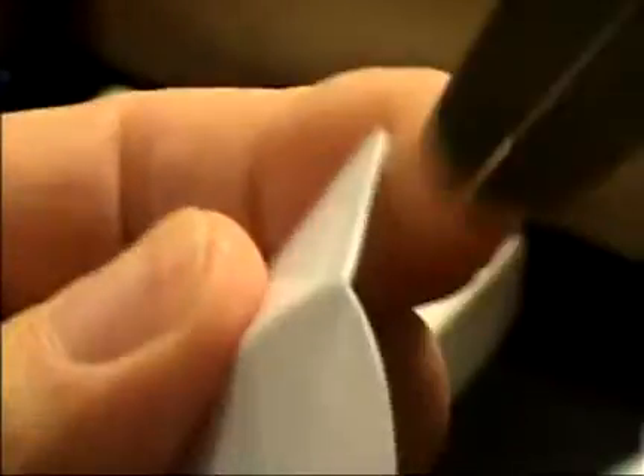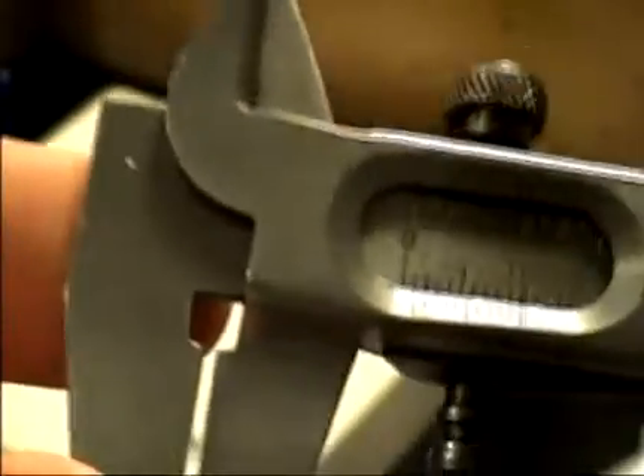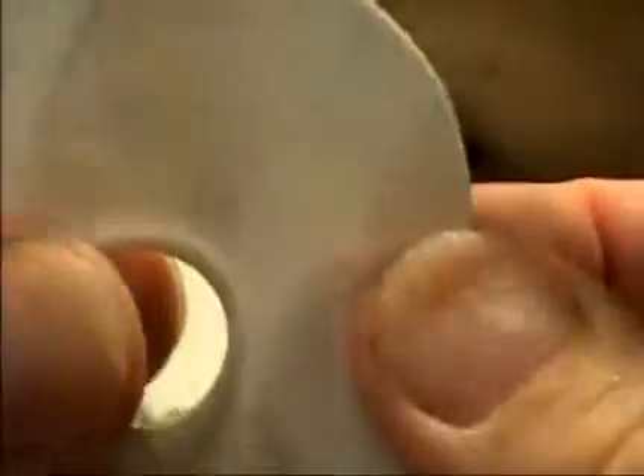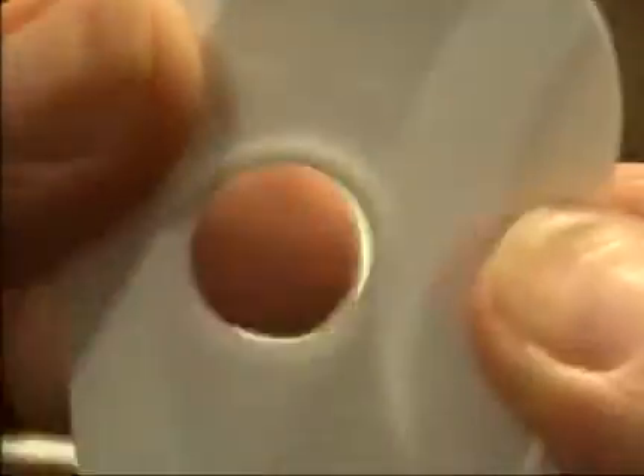The ones that don't work are more like a half a millimeter thick at each of those zones. Oddly, the thickest part is actually the last section — nearly a millimeter thick there. However, the weakness is at each of the other sections. So when it's clipped, it's weak, weak, weak, and then strong at the end. But at that point it's no longer able to hold against the Phoropter body because there's no physical strength in the face shield along the way.